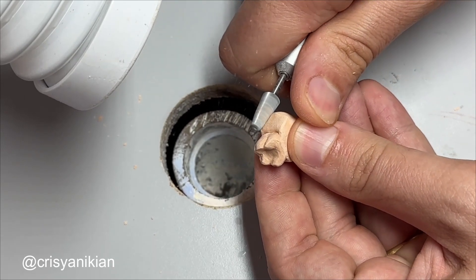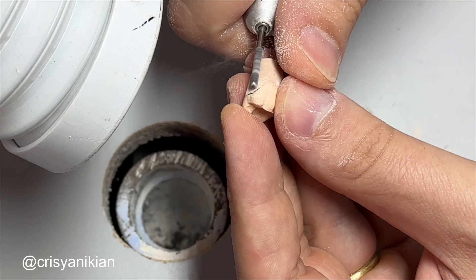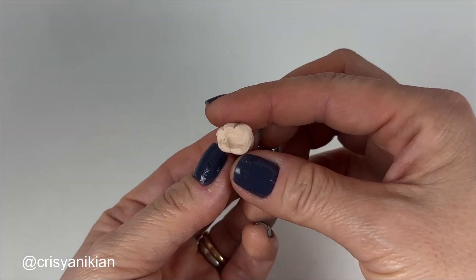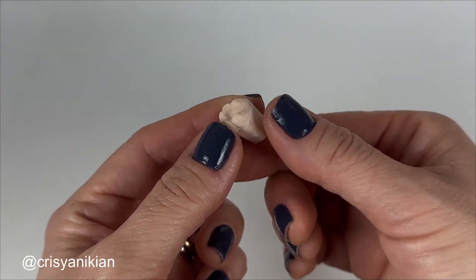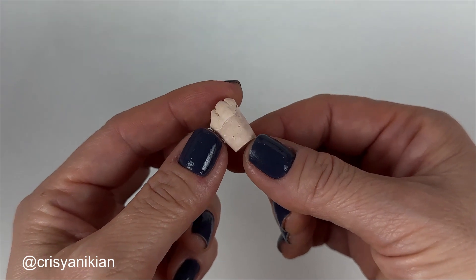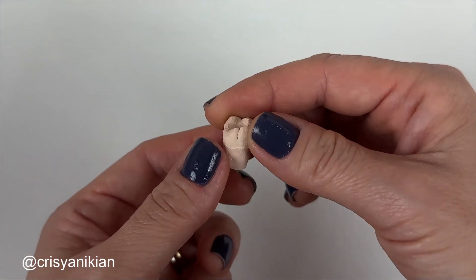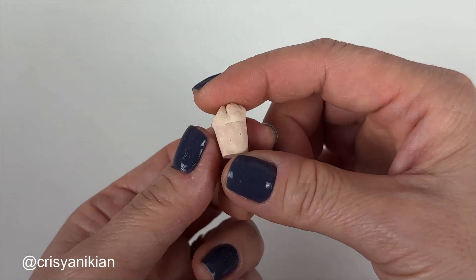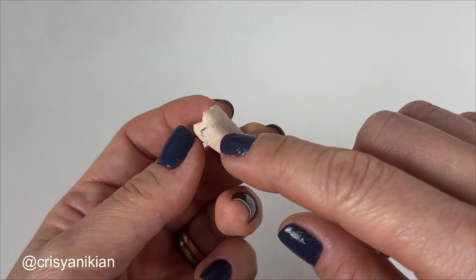Do not apply the maxi-cut over the prepared tooth area. Shape it like a cylinder under the tooth crown, but this cylinder should converge towards the cervical, as if it were a cone with the opening facing the tooth crown. If this cylinder stays straight or converges towards the occlusal, the die will not disengage from the cast. Before proceeding, remove all possible areas that could create retention in the plaster cast to be made later.